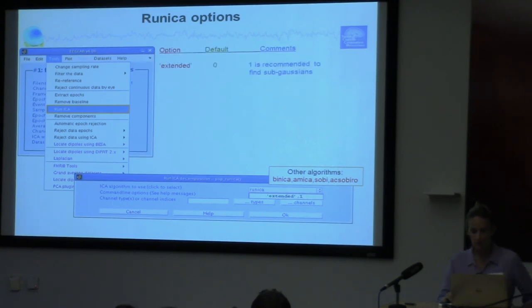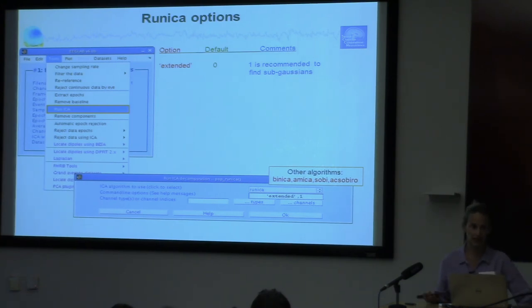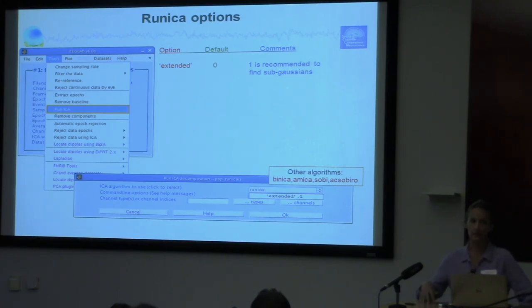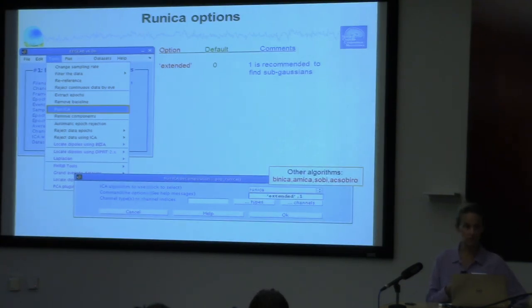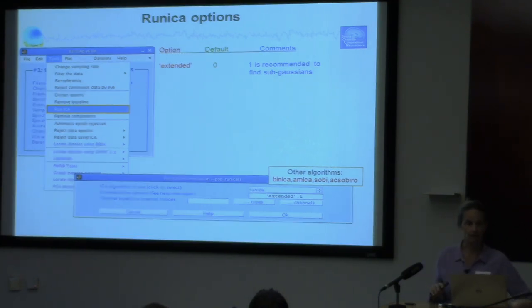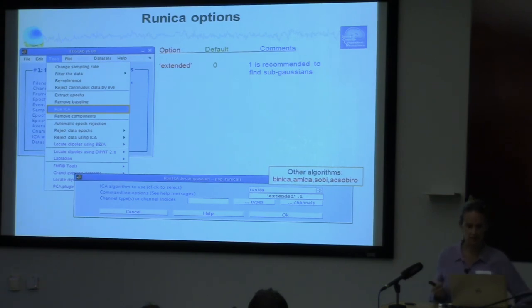The options you can input: the first one is Extended. Extended means it's going to look for sub-Gaussian components — generally that means it's looking for line noise and will try to isolate line noise into a single component. It doesn't usually succeed; you'll often find line noise in other components that are otherwise good brain components. If you really don't want that, you should use CleanLine first to get rid of enough so that Extended doesn't even matter, and you won't see 60 Hz anywhere.